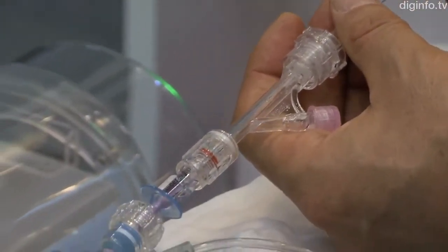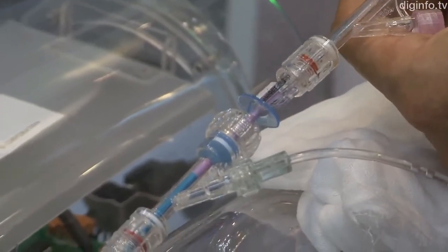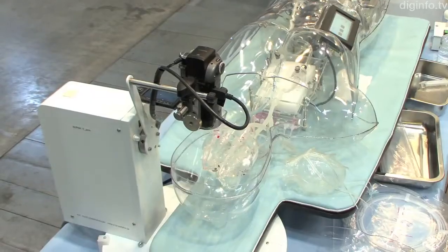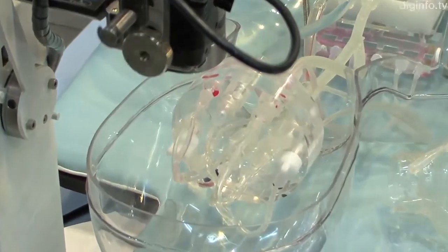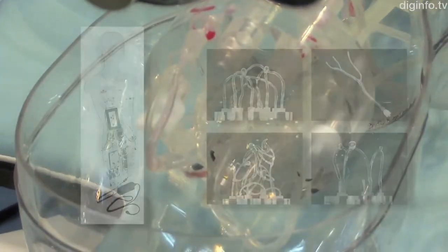Developed through joint research by Fuso and the Saitama Medical University International Medical Center, the life-size plastic body contains a blood vessel system that runs from the groin to the cerebral artery.